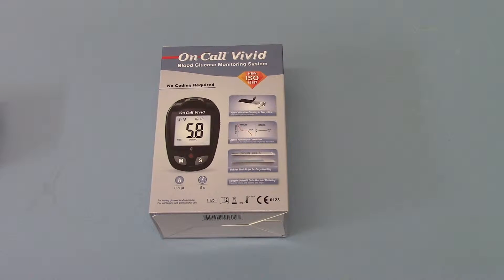The other ability that this has, which in practical terms makes it user friendly, is the ability to add further sample to the test strip if the first drop is inadequate. That reduces the wastage of test strips, which in meters without that technology would have to be replaced with a new strip. So that allows redosing if underfill is detected by the meter, and you can still get an accurate reading from that test strip if you spot that and refill it.